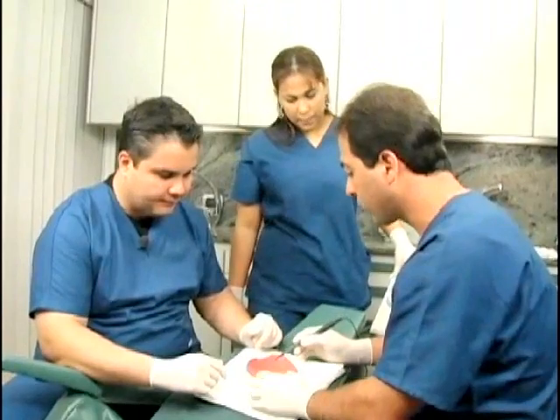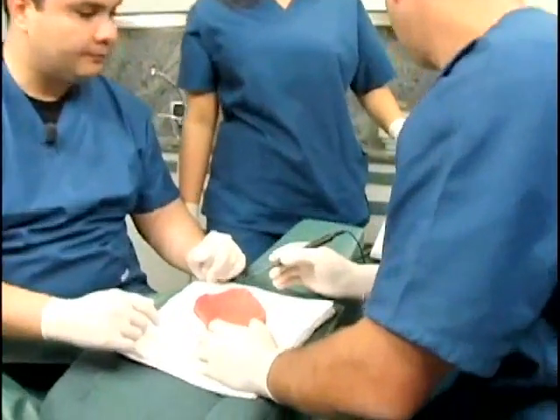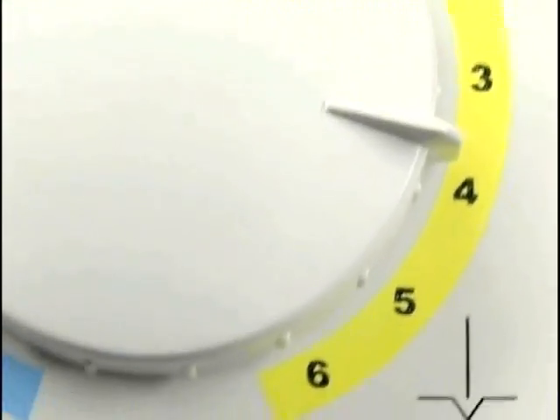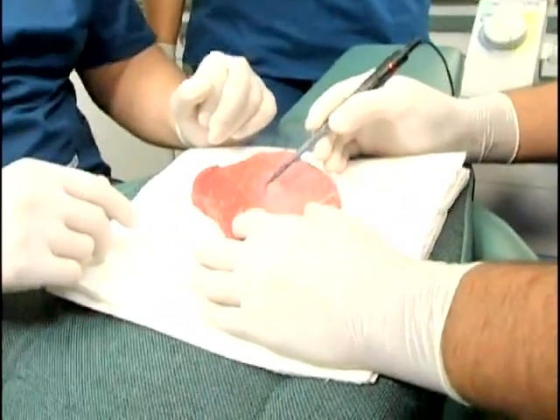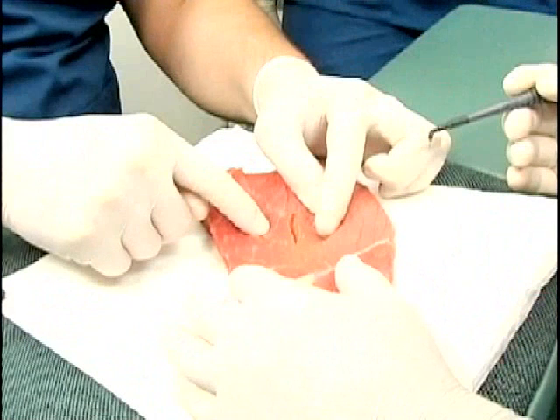Now we are doing a cut of approximately four centimeters. For that cut, an assistant will be used to set the power output to high. As you can see, we have deliberately set the output power to the highest setting. You can see that the electrode cuts easily, but the tissue around the cut is discolored and charred.